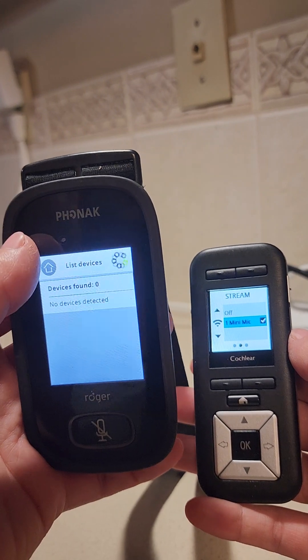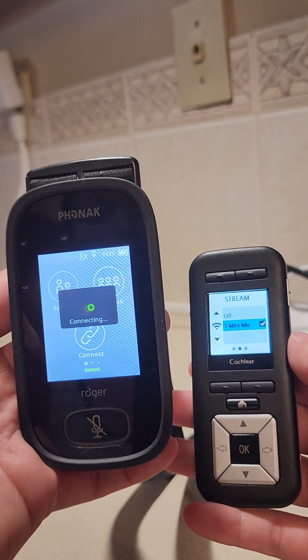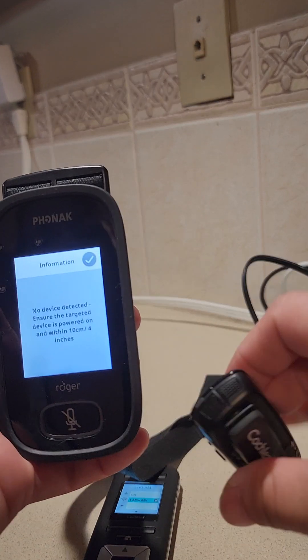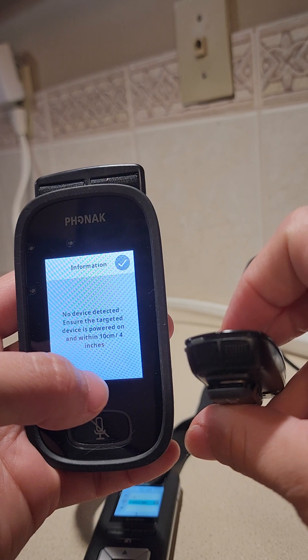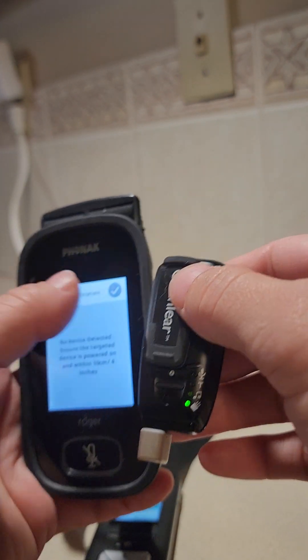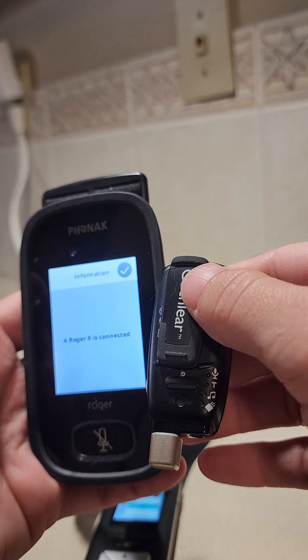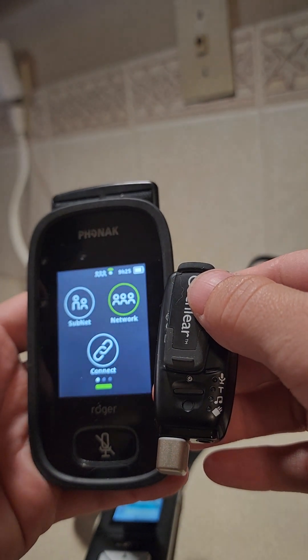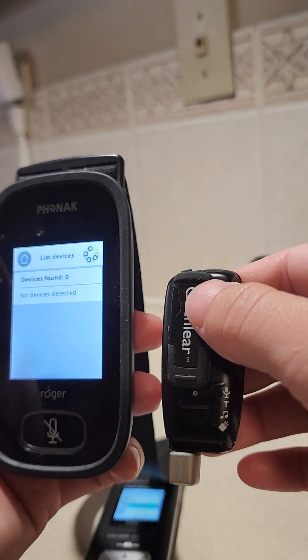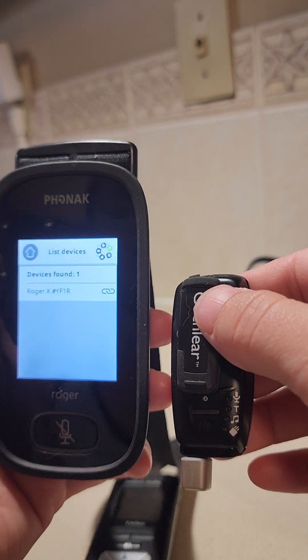Now it's not showing that it's connected, so we can try to connect again. It was off, so I'm going back to the one that's turned on — and there you go. Now we're connected to the network, which is fine. Either subnet or network will work, and there it is.